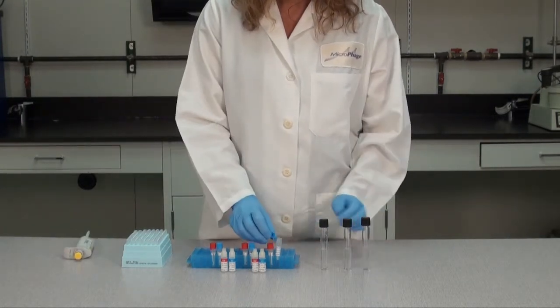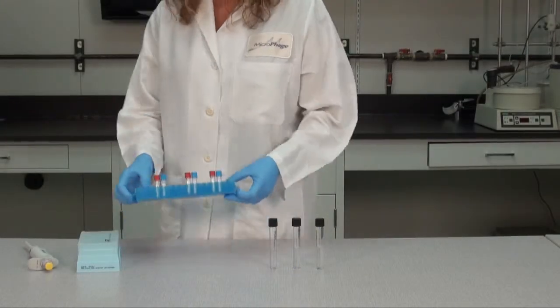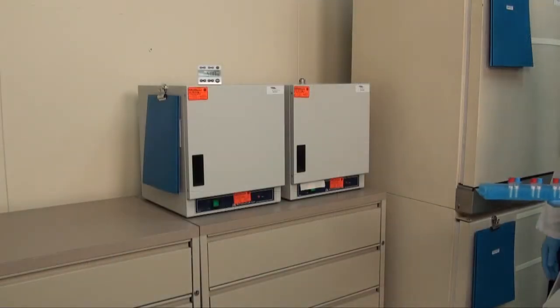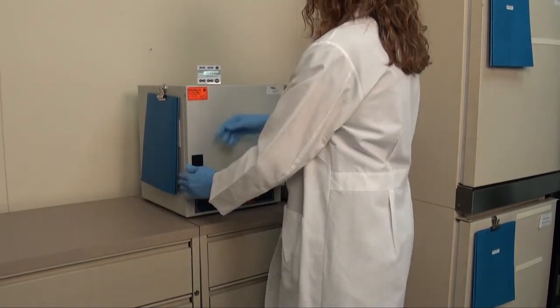Once the reaction tubes are inoculated, begin the incubation step and complete the test procedure as you would a patient specimen. Once the testing process is complete, interpret and record the results for each control test.